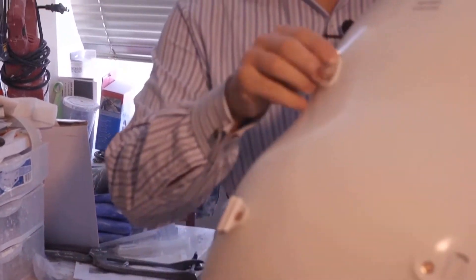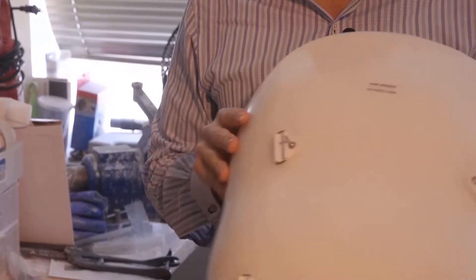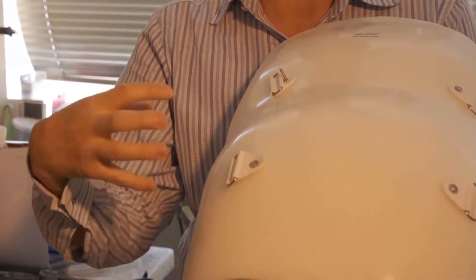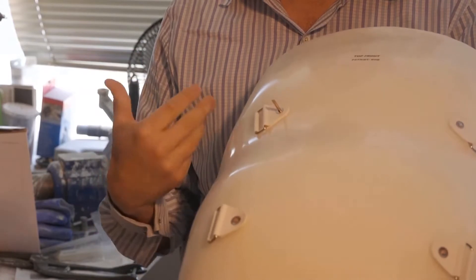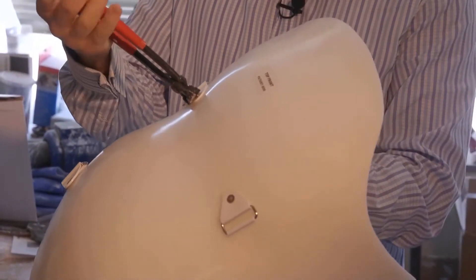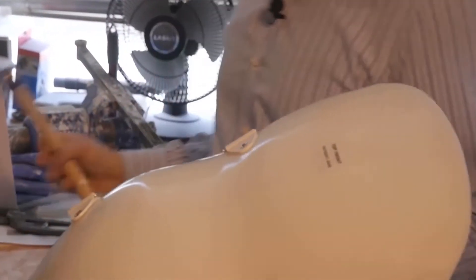As you can see it's on there and pretty secure, but you obviously can't leave it like that — it's going to poke a hole in somebody's shirt and create a problem. As you can see with the other ones, they're ball peened, meaning they're flattened down and spread out, which makes it much harder for the chafe to accidentally come off. We use copper rivets at Ranel Orthotics and Prosthetics — I believe they're the most secure fastener for these straps and chafes. Now we have to do the process called ball peening.